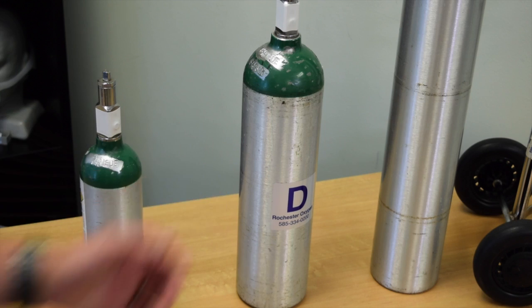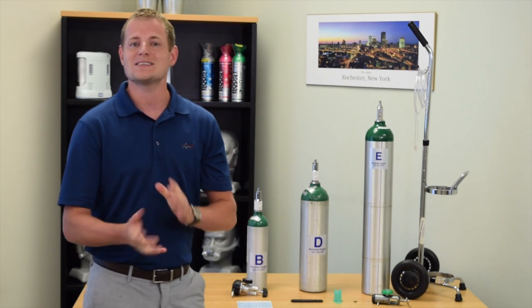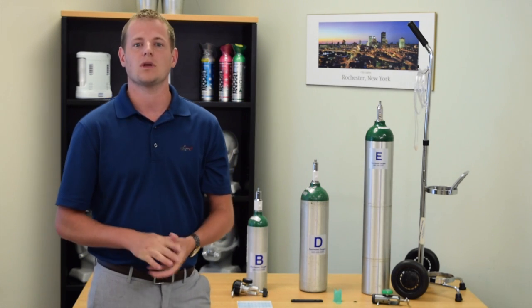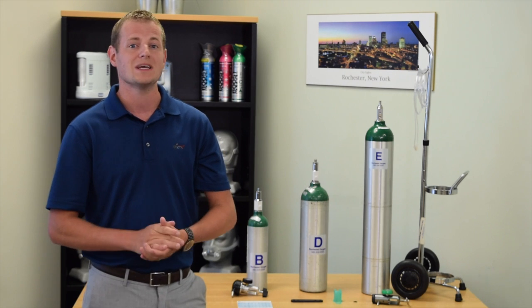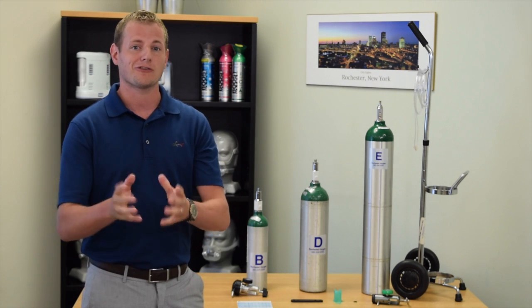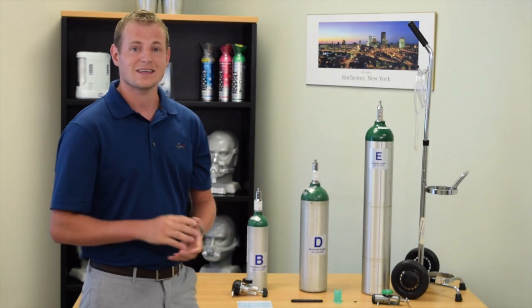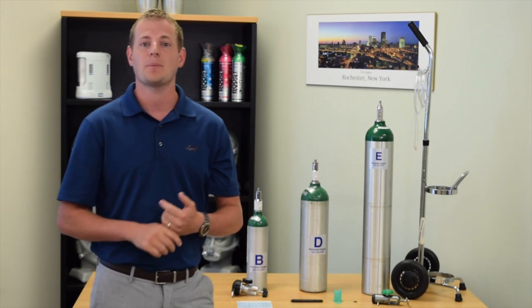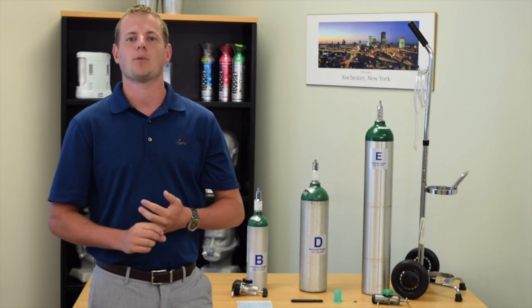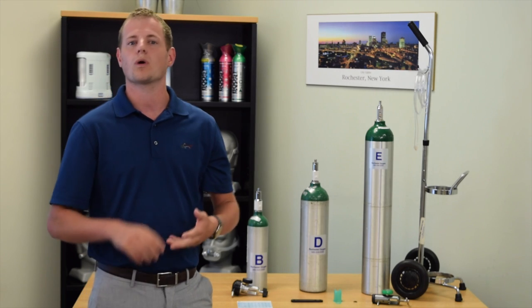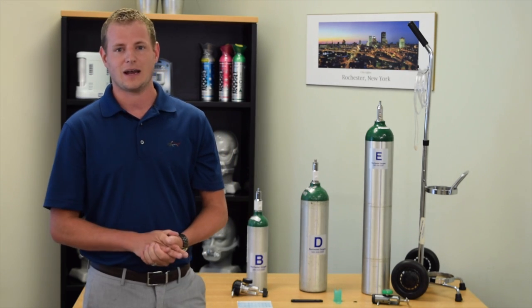The D tank is the most common home tank. It weighs about five pounds and runs for approximately three and a half hours on a flow of two liters per minute. It's lightweight, easily transported in a backpack, and very capable of coming with the patient to stores, in the car, and things of that nature.